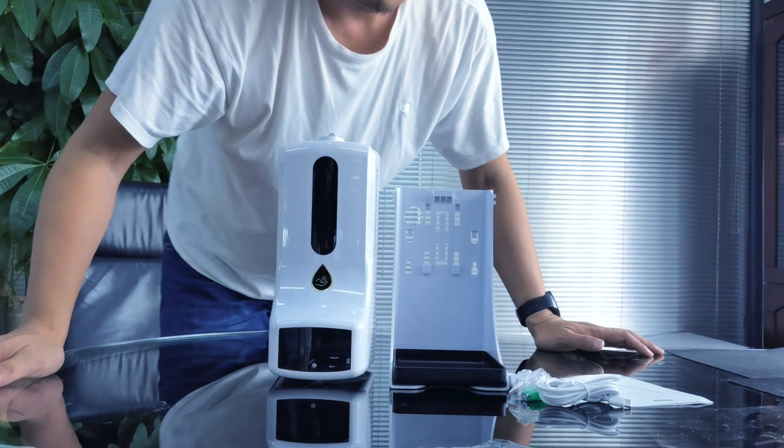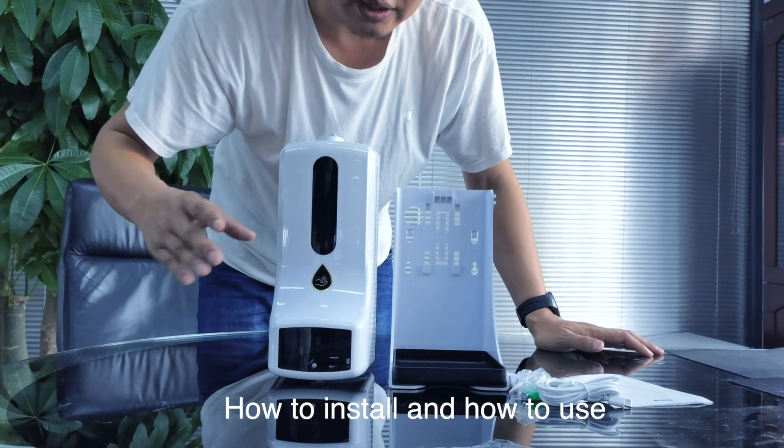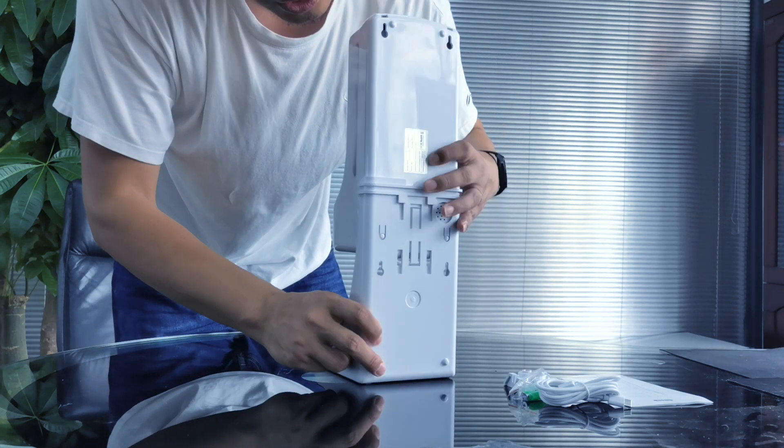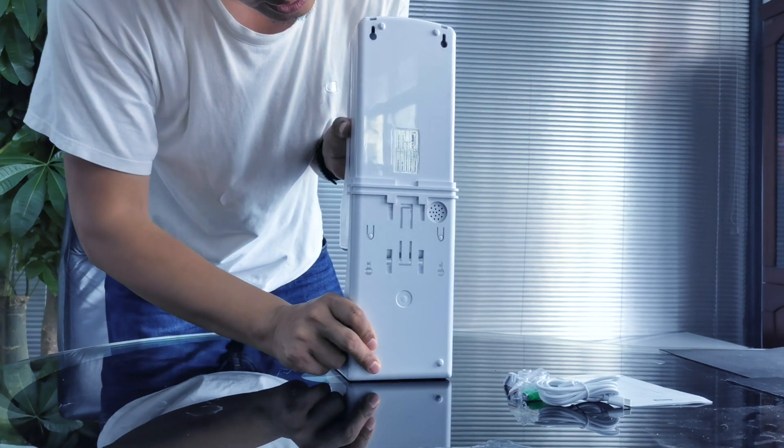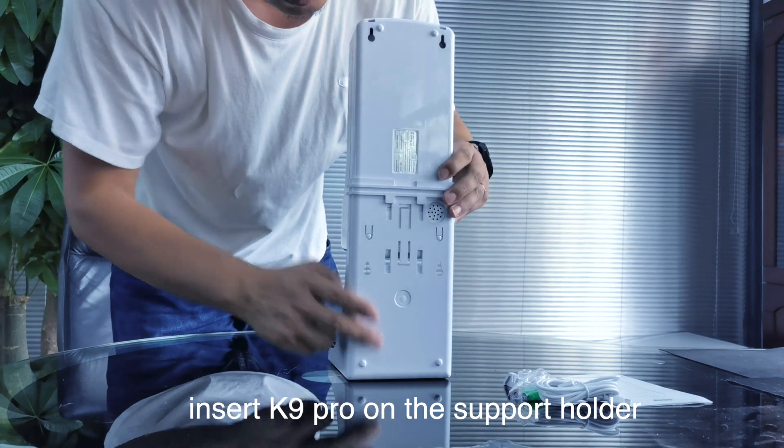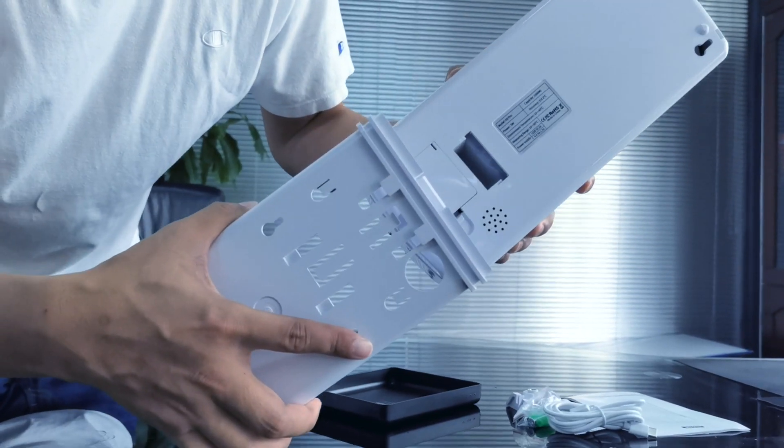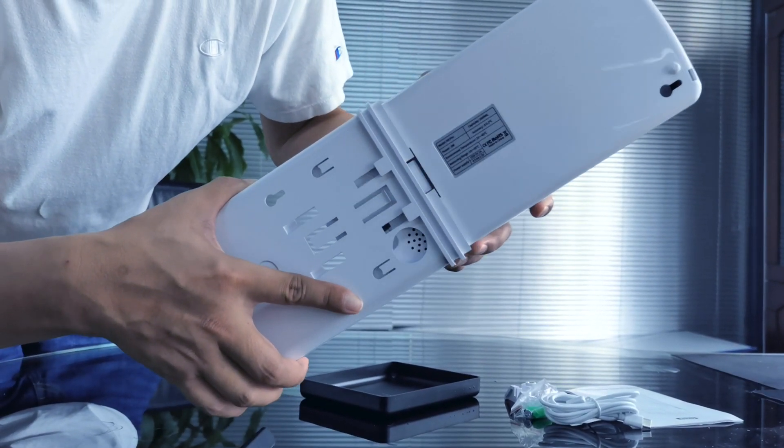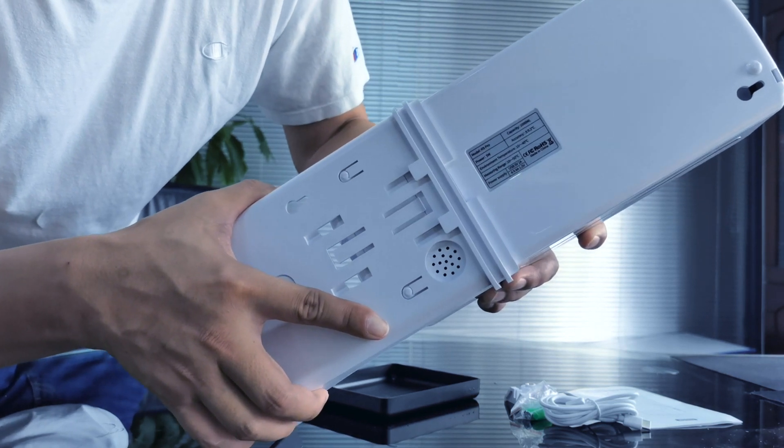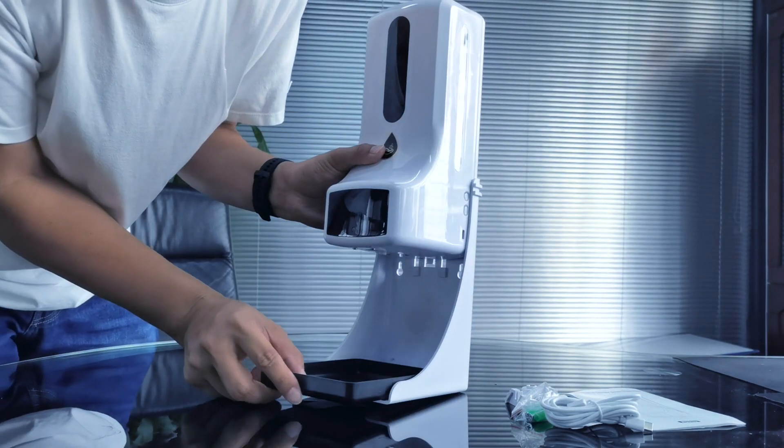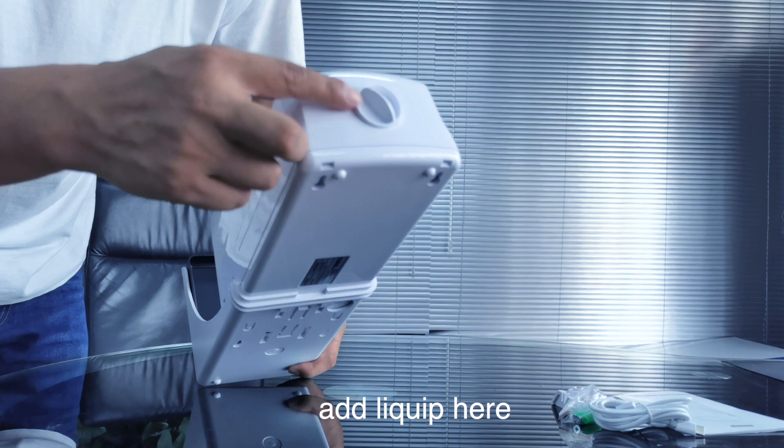So now we'll show you how to install and how to use. You just need to insert the K9 Pro on the support. Yeah, it's okay. We can add the liquid here.